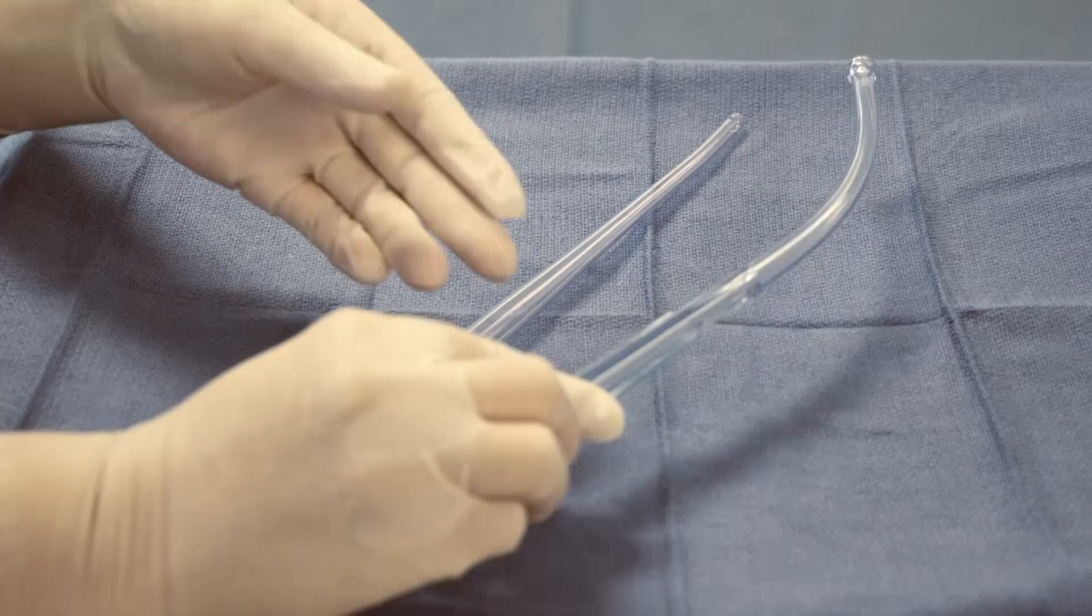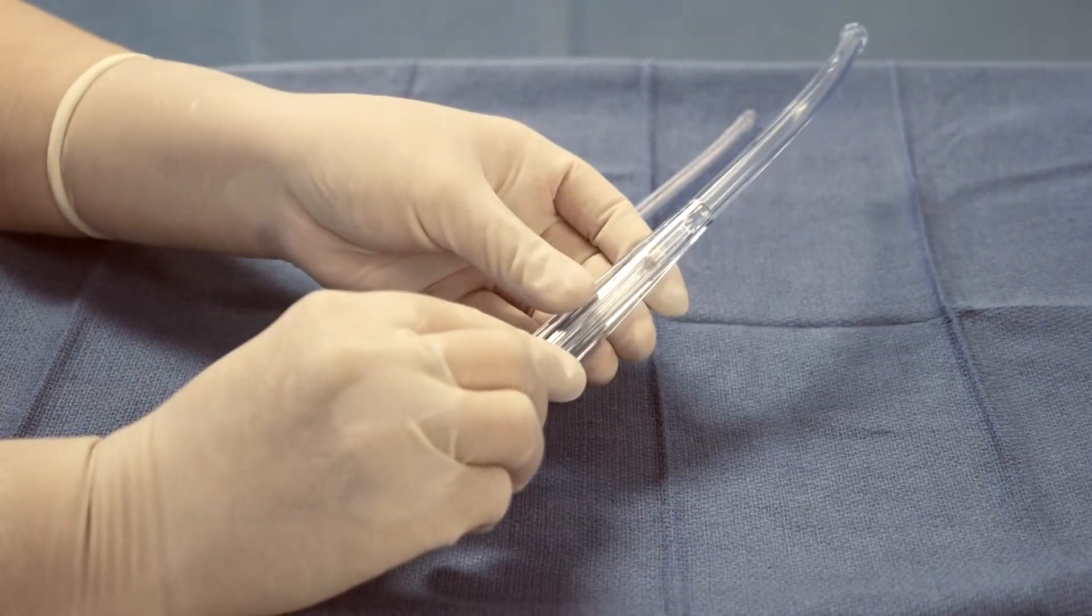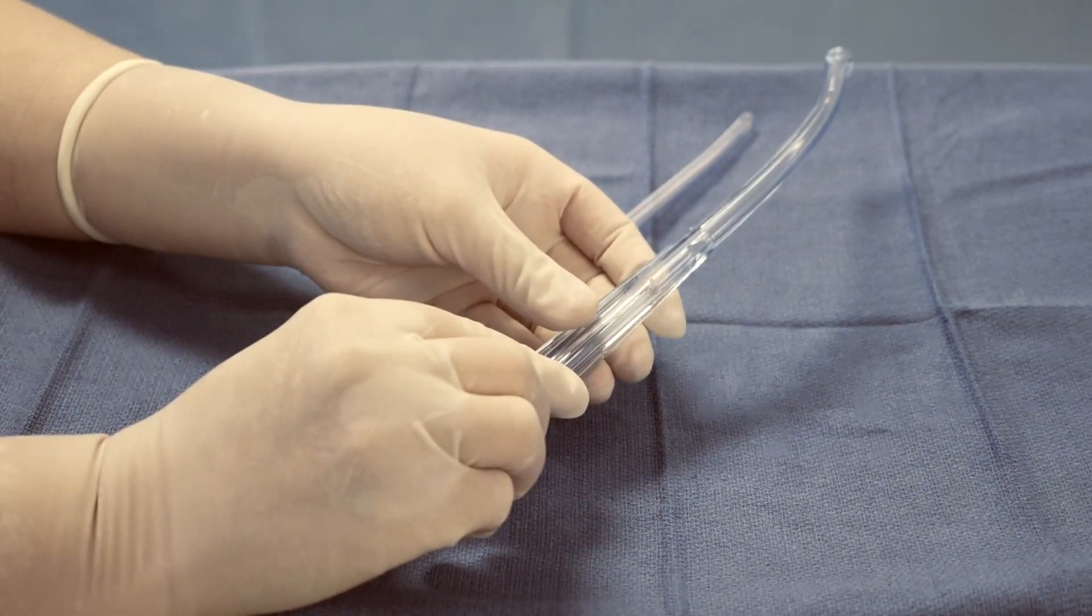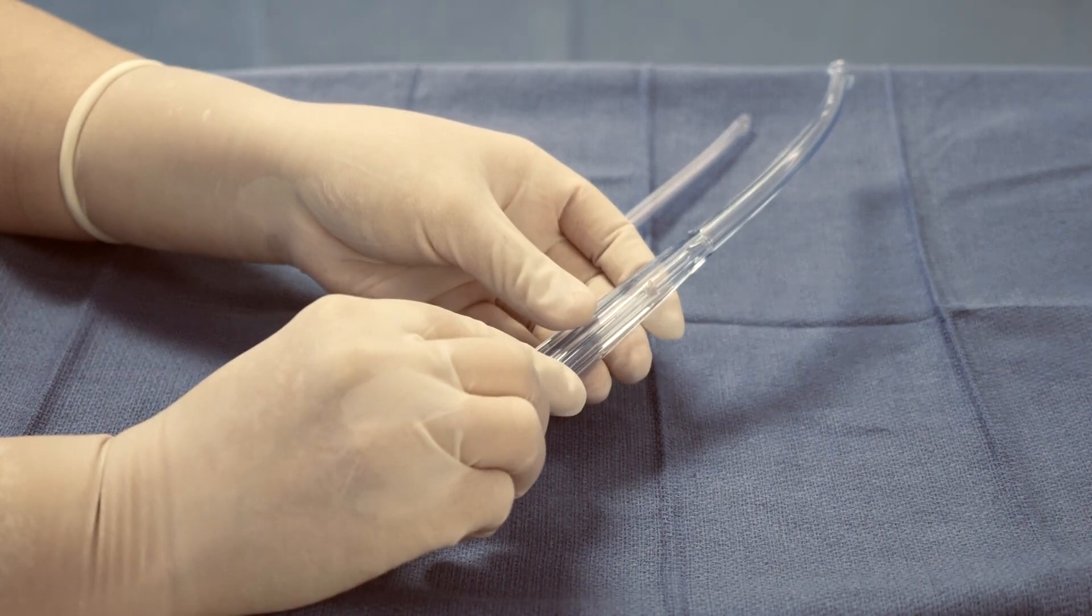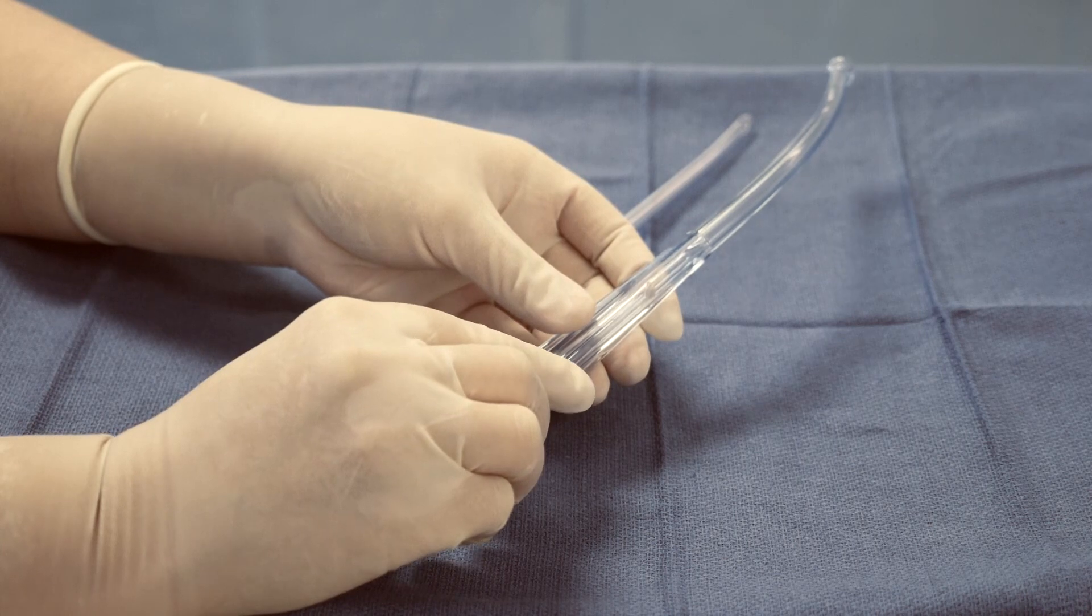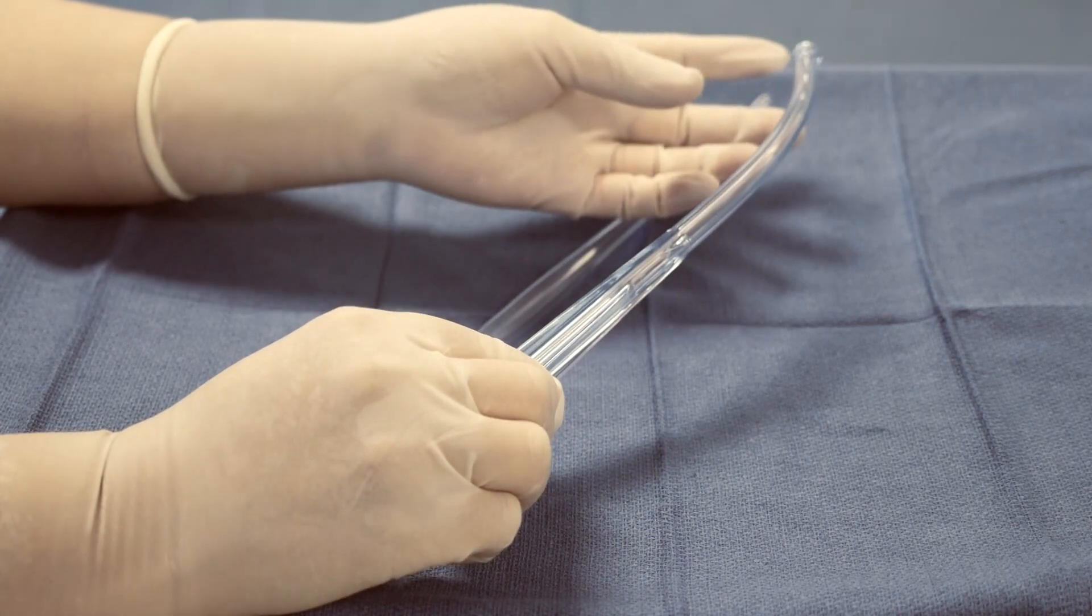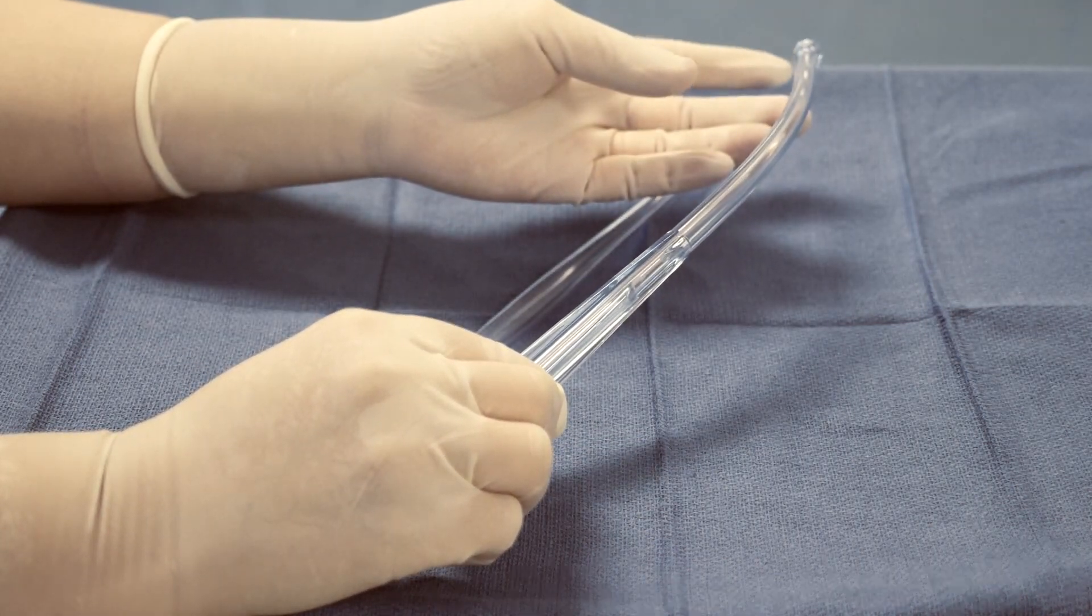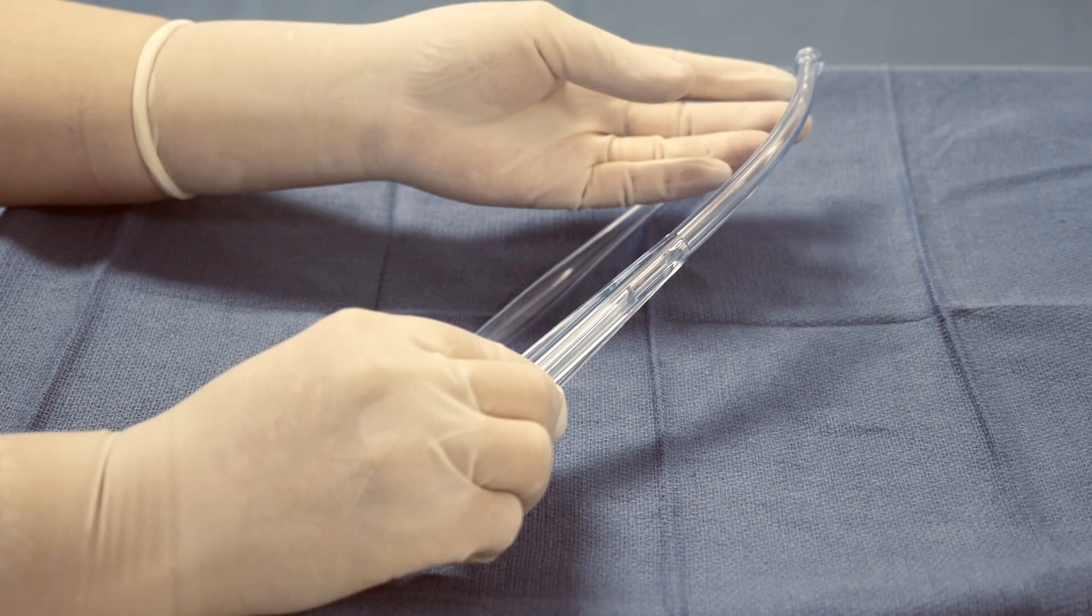These are used to suction out irrigation or other body secretions in the patient's cavity. They're commonly used in abdominal or thoracic surgery to suction out secretions.